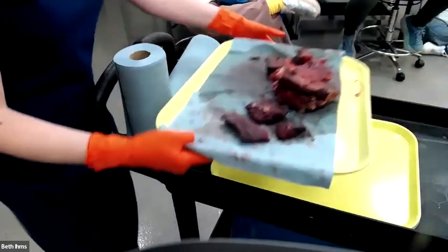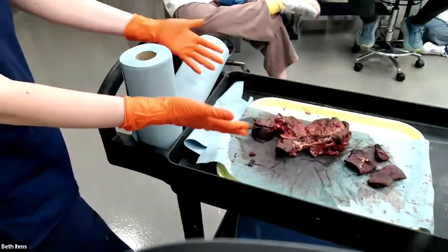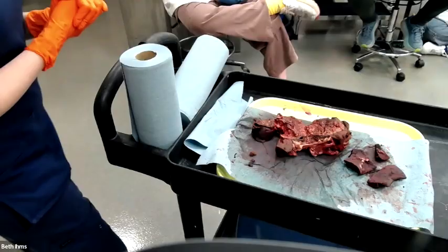Okay, so again, I'm on biopsy. This is a biopsy that came to me. This animal is alive, for now. They might not be after they read my report because it's not right. Okay, so could anybody tell the organ?